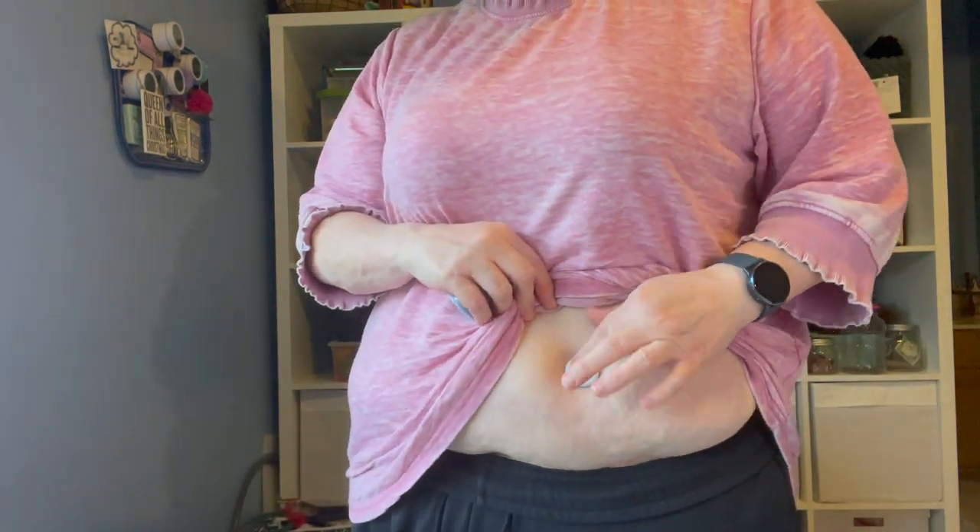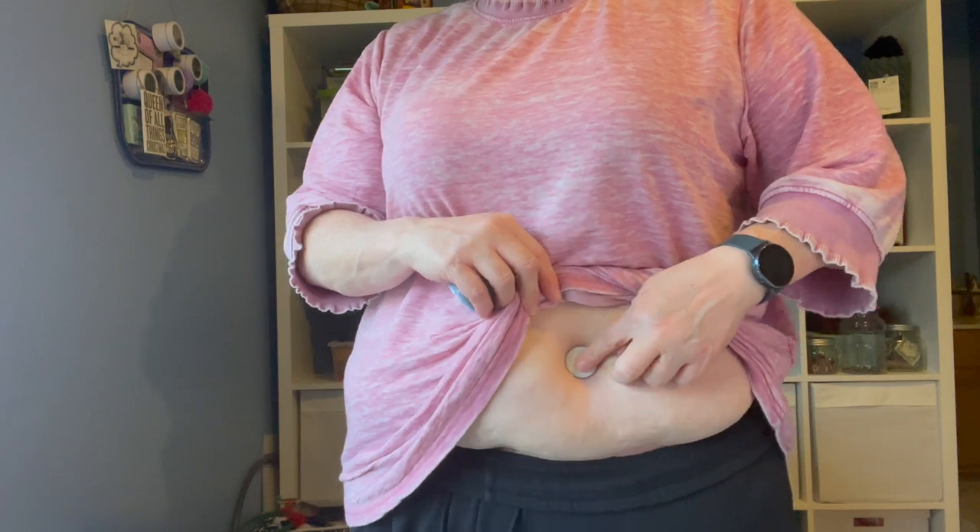It's on there and stays right on my skin. Because I've lost a lot of weight, my skin is kind of loose and I think that's part of the issue, so I might need to buy some over-tape to hold it in place. There is a lot of medical waste unfortunately and there's really not a lot you can do about it — those sensors are very expensive and need to be protected.